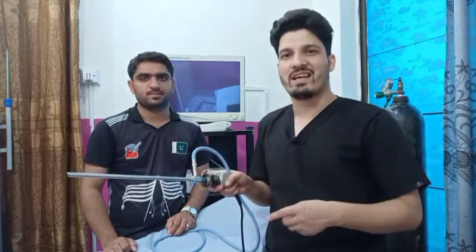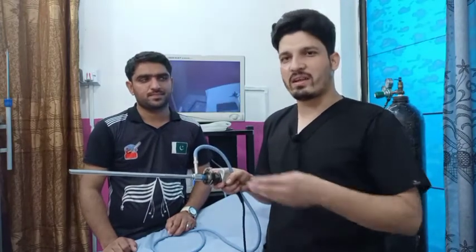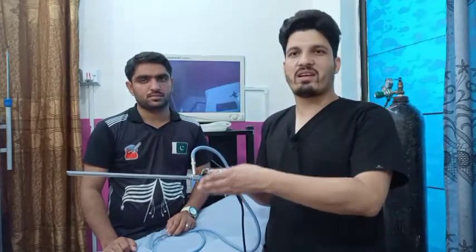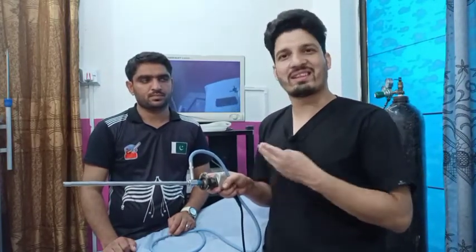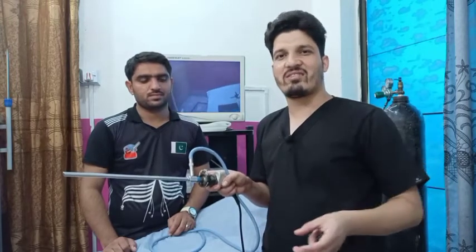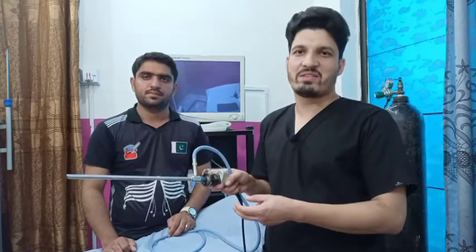All the colors are made up of only these three colors. The three-chip camera is the better camera — whenever blood comes, the one-chip camera goes blind and you are in trouble. For better vision you must use the three-chip camera, which adjusts the white balance and gives better colors and better visibility.